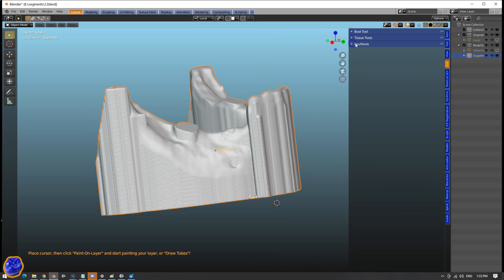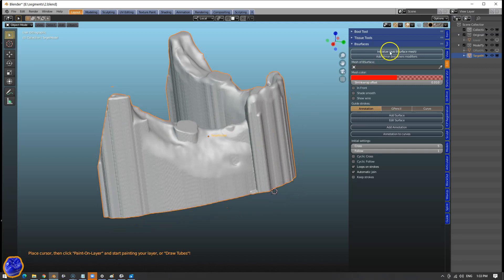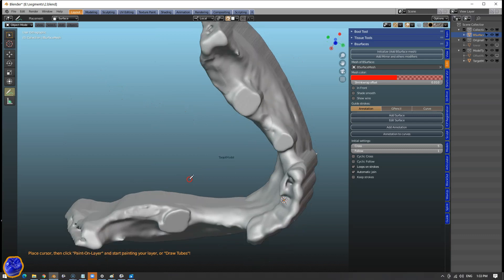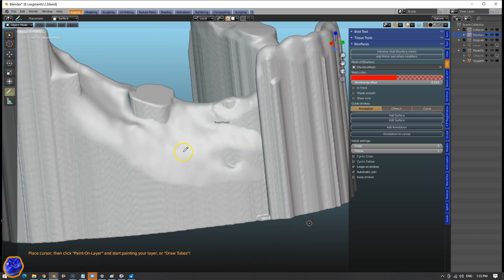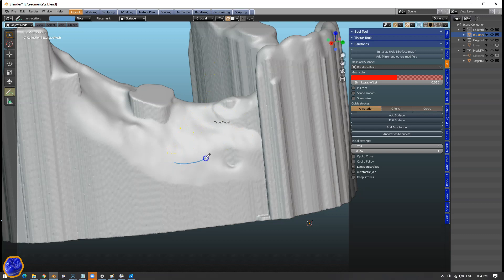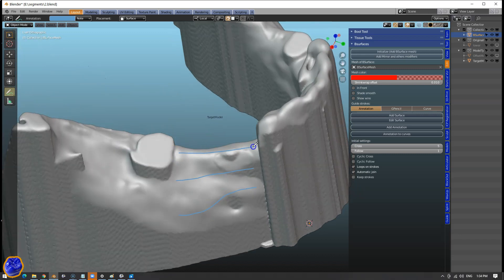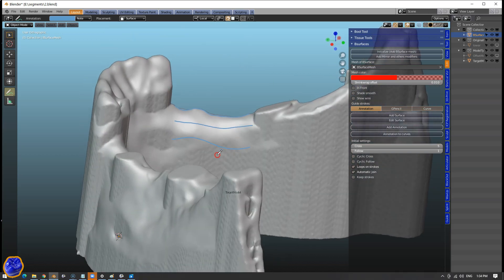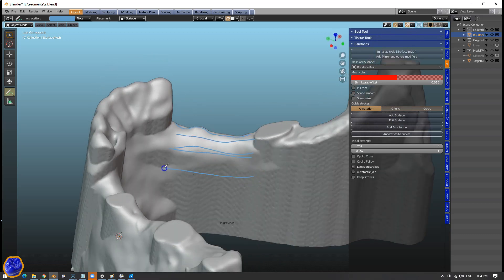Then in Edit mode we will be able to see this add-on — B surfaces. Now select your model, initialize, add B surface mesh. Make sure the surfaces is selected while you're drawing, and keep in mind which way you're drawing. So here I'm drawing from the molar towards the anterior teeth, so from left to right. This is critically important. Space the lines out more or less like I'm doing now. If you're turning it around, make sure that you are drawing in the correct direction, otherwise this is not going to be working.